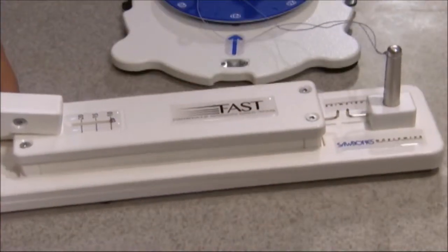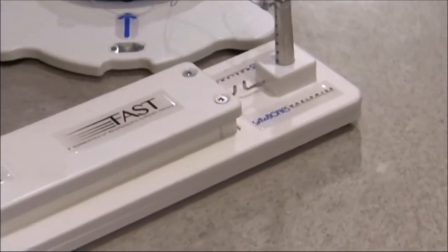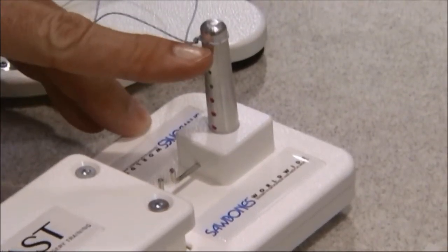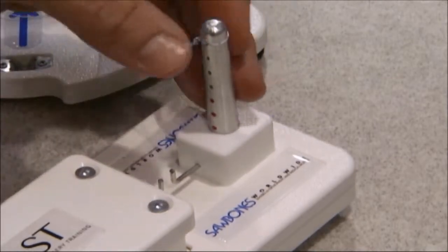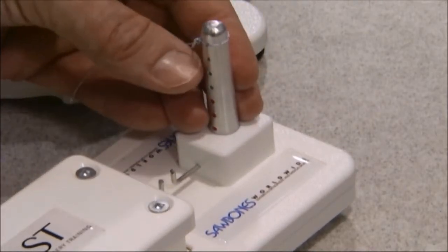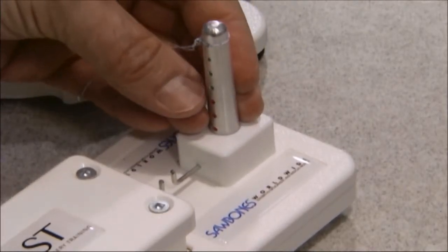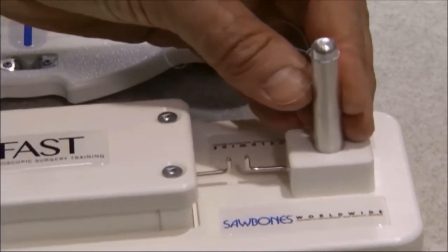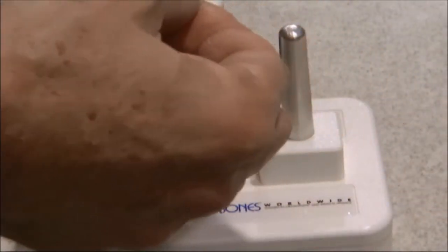If you zoom in on the end of the knot tester, I'm going to tip this for you. You can see those little marks there. The first mark is exactly matched with the size of the mandrel, and each millimeter down is signified by those different dots as we go down on the knot tester. So I know that my baseline loop, the loop security, matched the size of the mandrel. And that's a good thing.